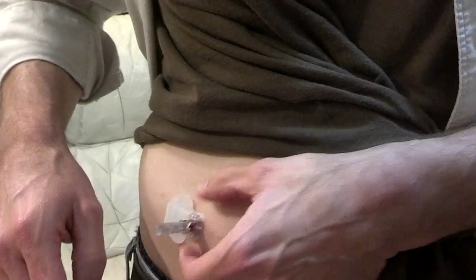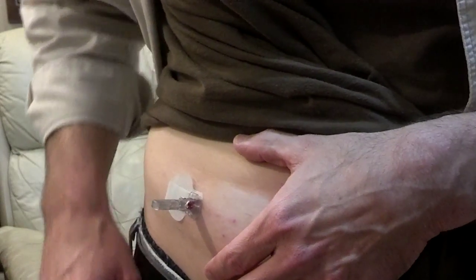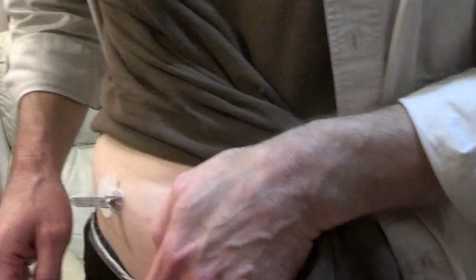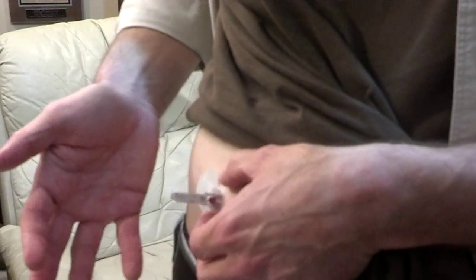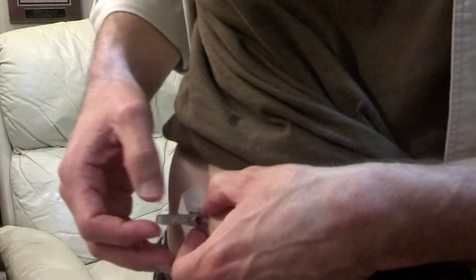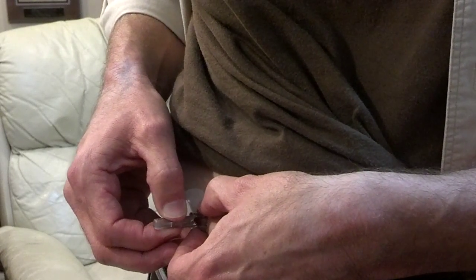I could get some pliers and twist this, but I'm actually afraid that the plastic would break and I don't want something to happen that would hurt me worse than this is hurting right now. I just wanted to show that I am doing everything I can to remove this the proper way — which, when it works correctly, all I have to do is just grab it and pull and it just magically releases. But there's a night and day difference between that and what I'm having right now.